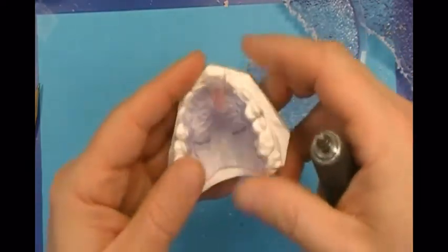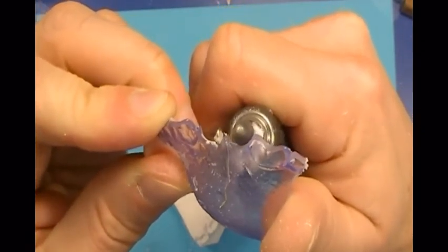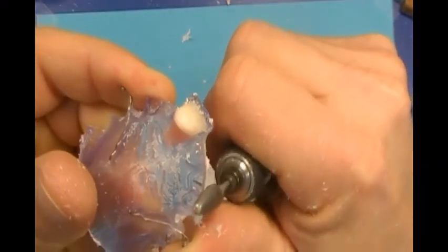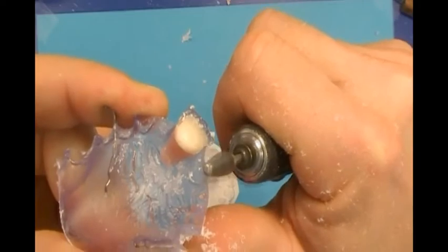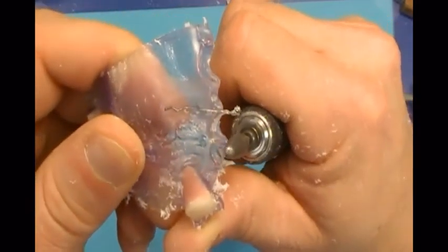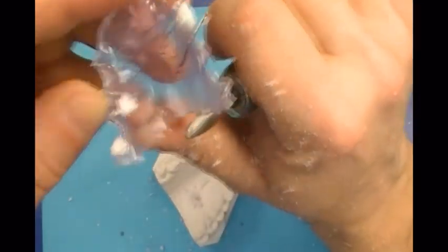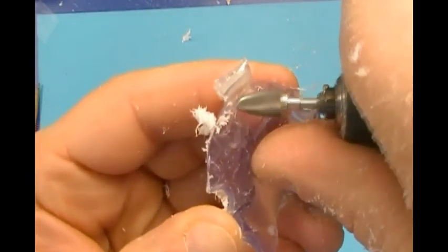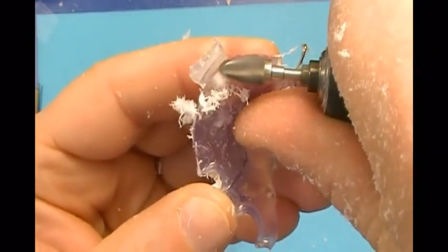The posterior segment is scalloped one and one-half millimeters above the gingival margins to rest against the cervical crown surface, and rounded to the interdental papilla height along the anterior dentition. This is accomplished using a carbide cone or tapered bur and a lab handpiece. At the pontic, do not trim into the plastic tooth. The back or heel of the retainer is often tapered forward near the mid-palatal area. Maintain plastic contact against the last tooth on each side of the arch and taper acrylic forward about one-quarter of an inch. The formed retainer acrylic that caps the top of the pontic is removed using the nose of the taper bur; do not grind into the plastic tooth.